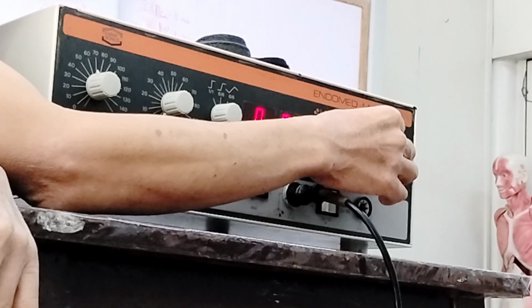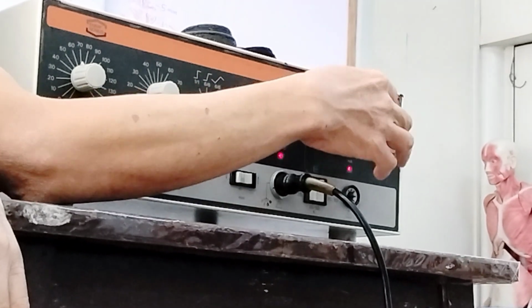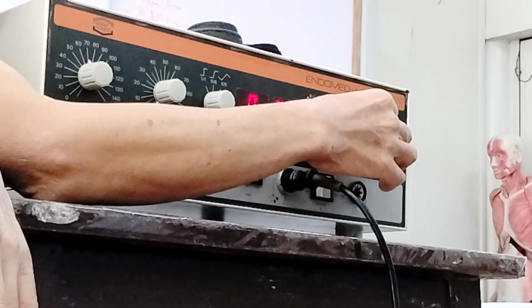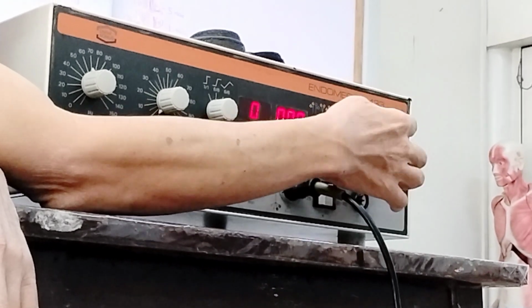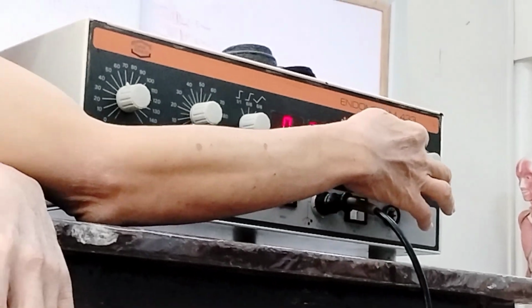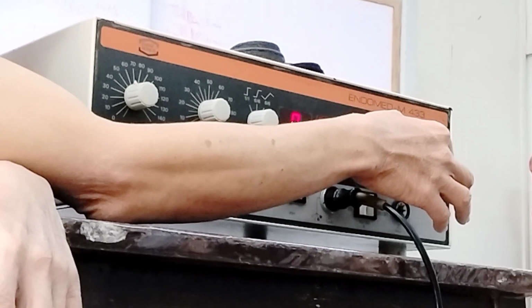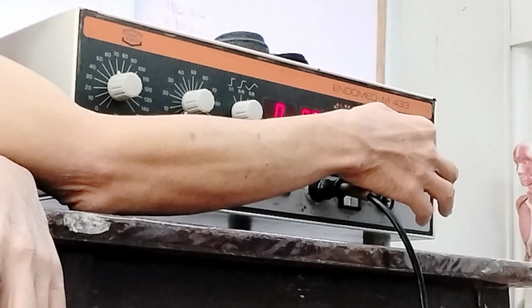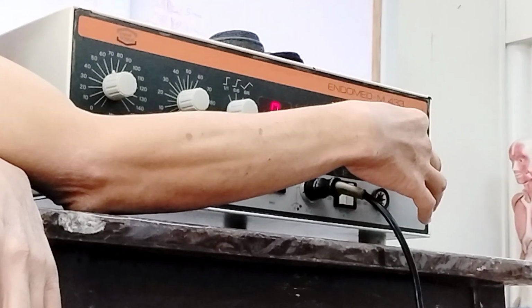Okay, next, this is the knob used to adjust the intensity. If you turn this clockwise, you are increasing the intensity. You can see that it widens there. A clue if you forget: just look at the widening, which indicates that your value is increasing. If you want to decrease your intensity, you just turn this counterclockwise, and the clue there is the pointer.